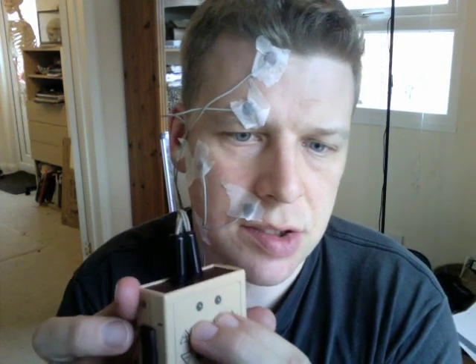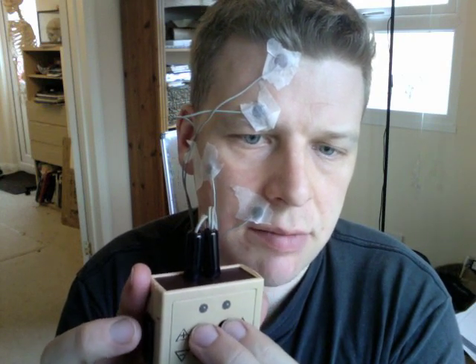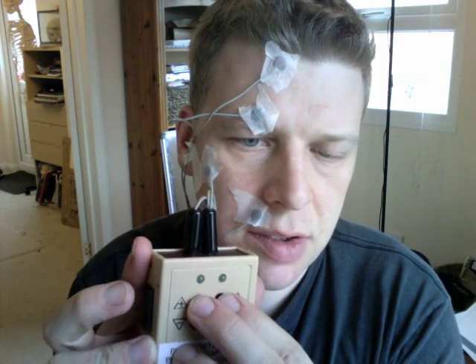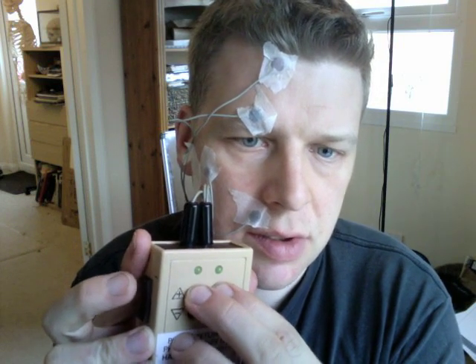So off and on. When the green lights are on, you can press the top buttons to actually increase the amount of stimulus that you get, but it doesn't work to increase it if you press them when they're not lit up. As you can see, I'm upping it quite a lot. It shouldn't be so that you can feel pain, but you should be able to feel the stimulus on the electrodes.